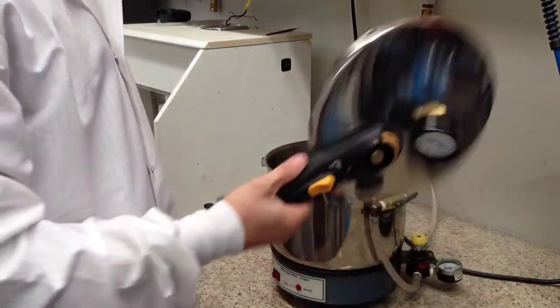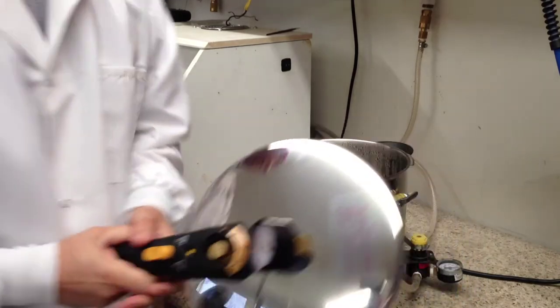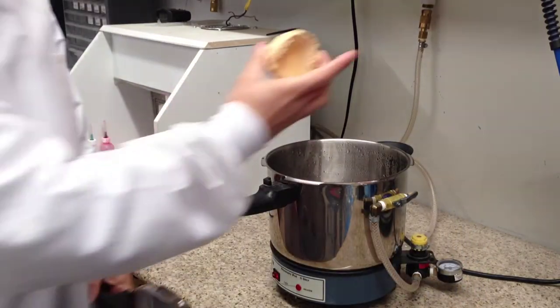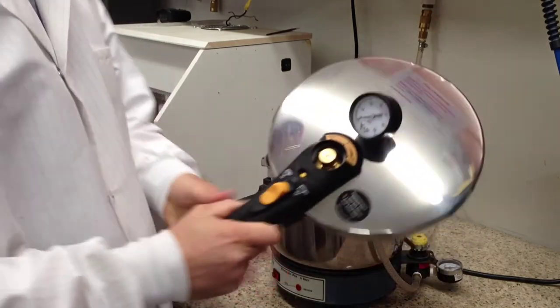To use the pressure pot, you have the lid and the base. You are going to place your model into the pressure pot.